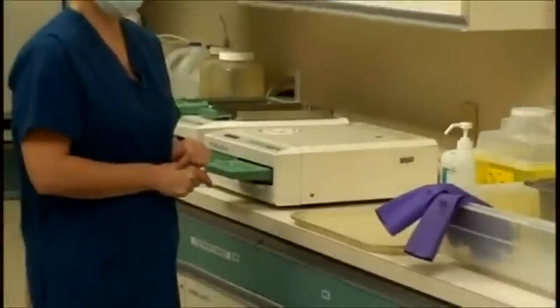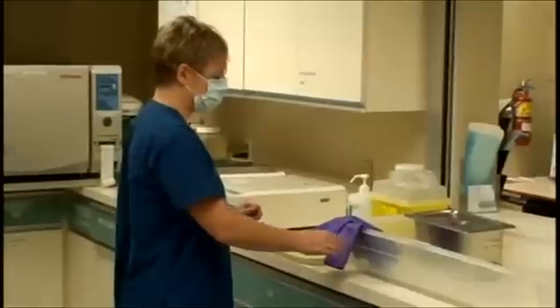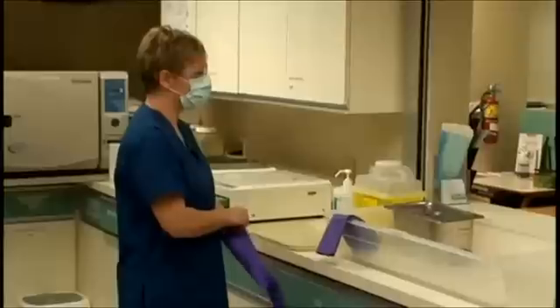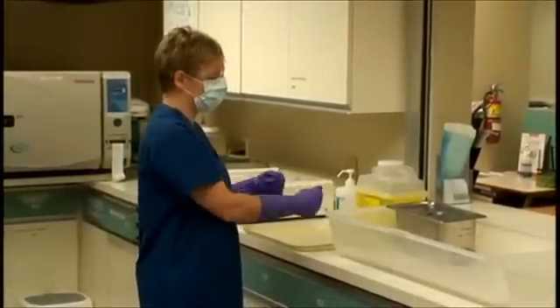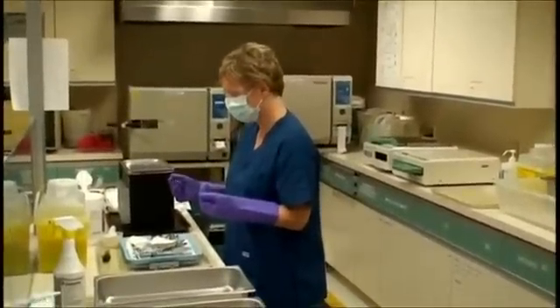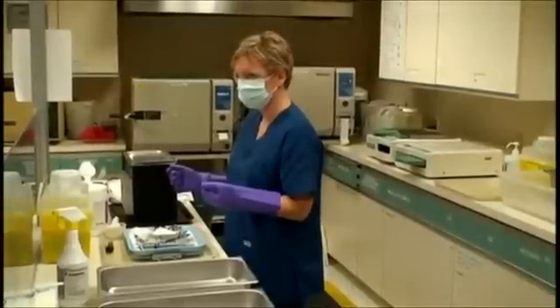Remember, when handling the outside of the equipment you will use clean hands. If you touch the outside of the sterilizer cassette with dirty gloves, then the next person will touch the sterilizer with clean hands and you will have contaminated that person's hands. Everyone must follow the same rules. If you do mistakenly touch the sterilizer with your heavy duty glove, wipe it down with wipes.